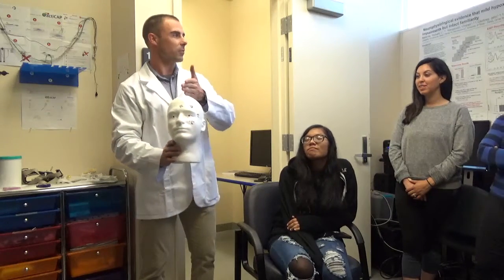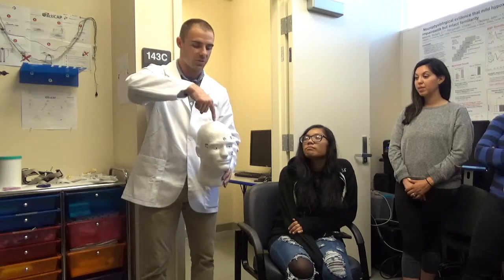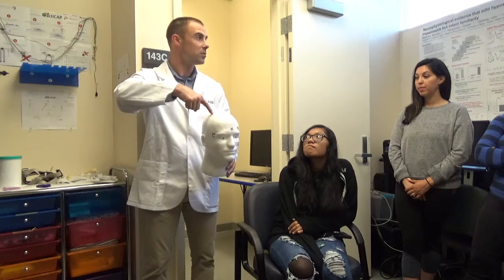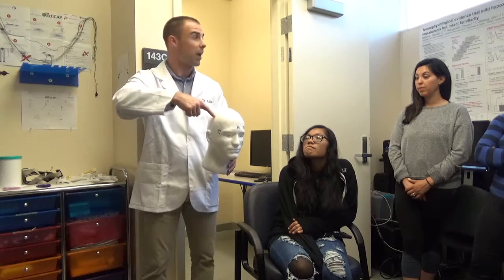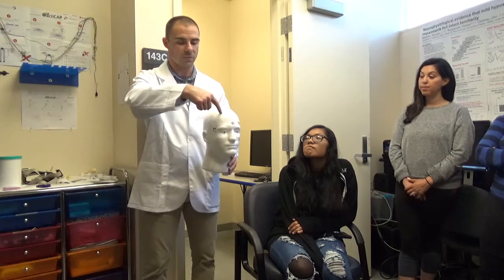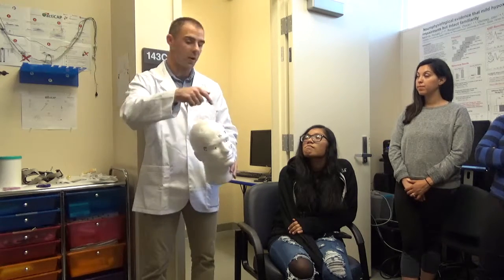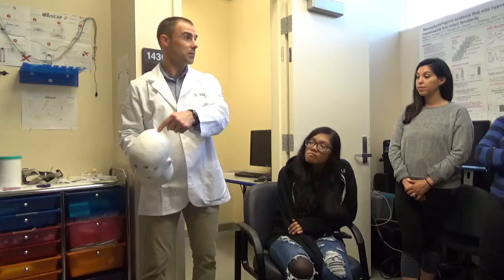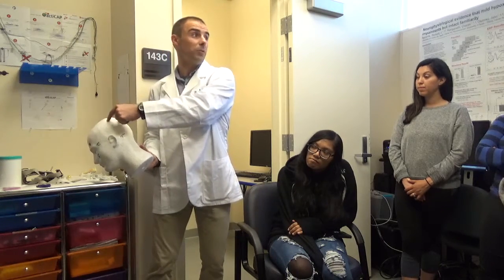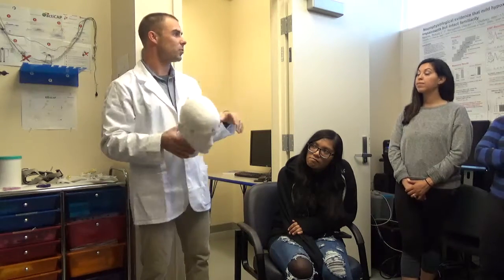The odd side is going to be 1, 3, 5, 7, 9. So let's stick with the central site, right? CZ. One spot over is C2. Another spot over laterally as you move further is C4, C6. FZ, F2, F4, F8, or 6 and 8. Likewise, PZ, P3, or P1, P3, P5, P7. And you see those combinations. We'll get to that later in class.